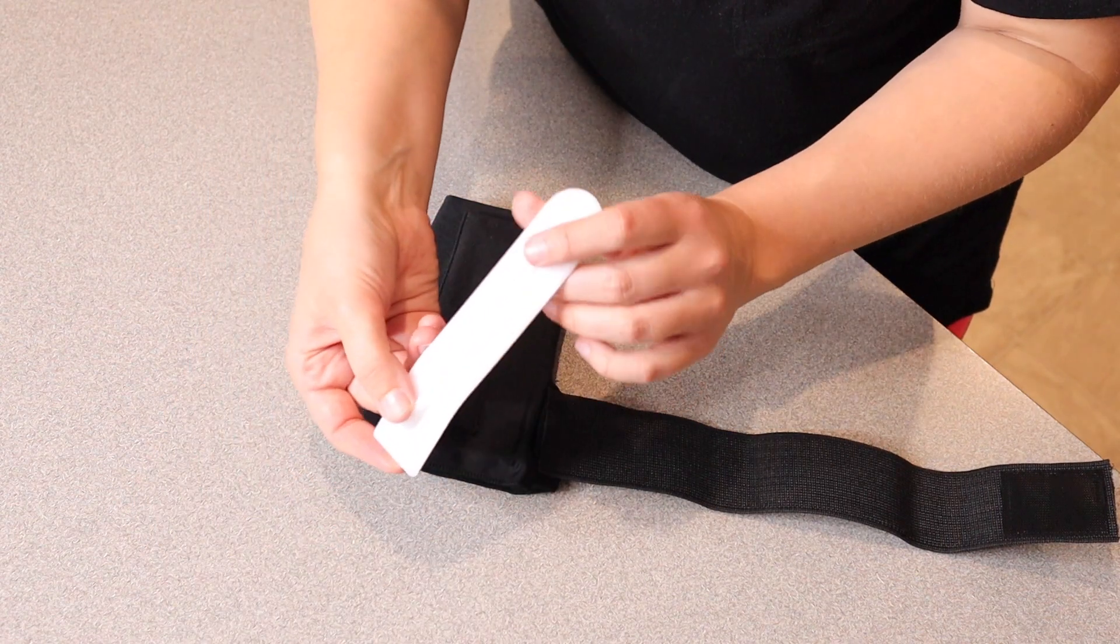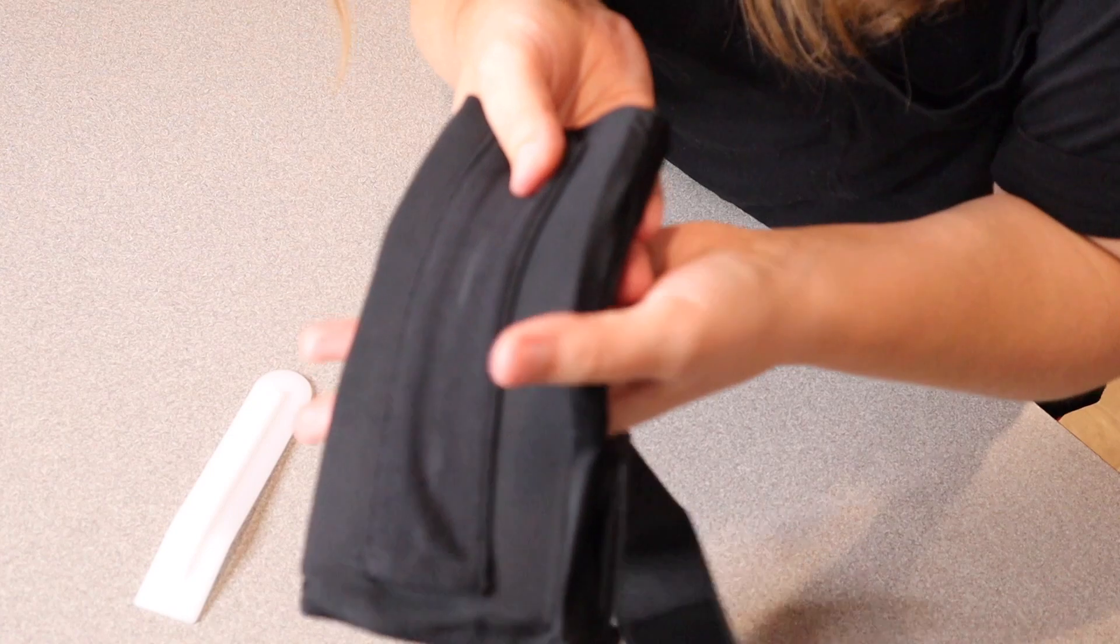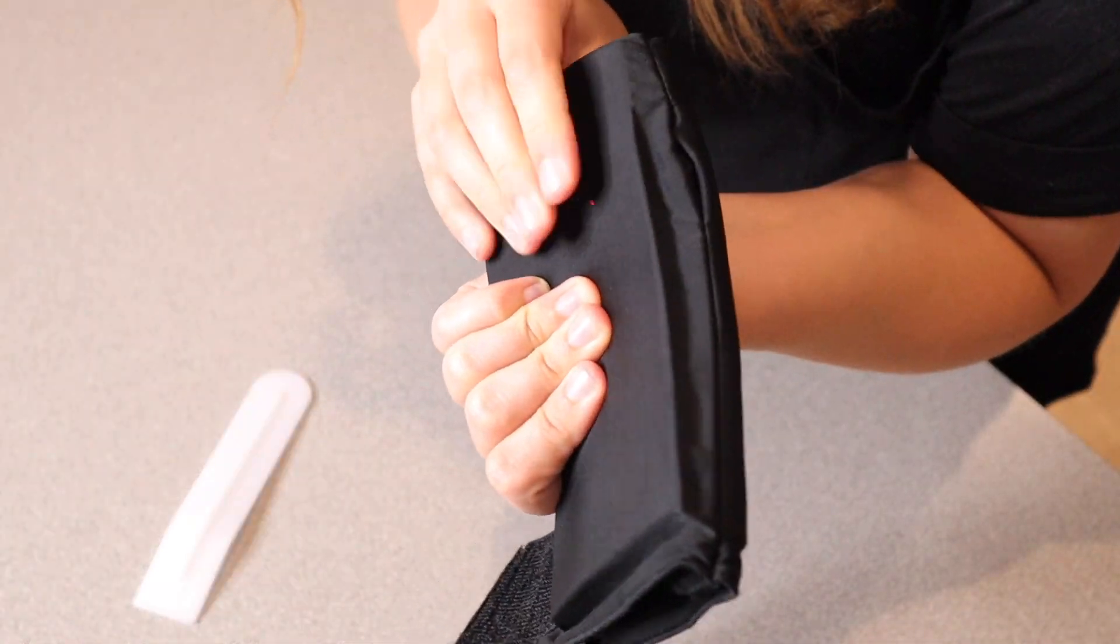It does come with this little splint right here which is really going to help with the stability depending on what your issues are. So this is what it looks like right here. It has a gel feeling to it.